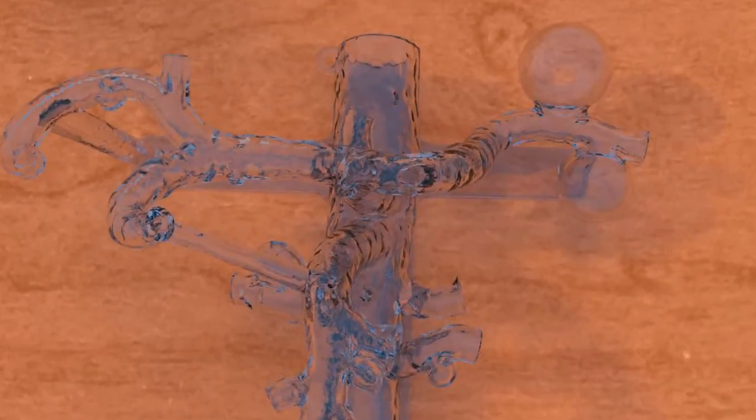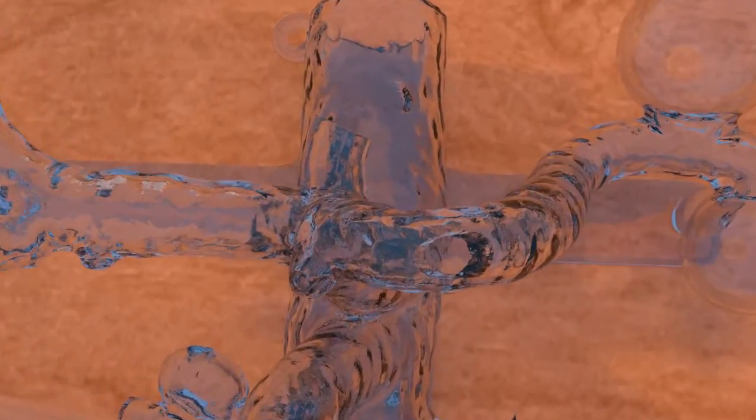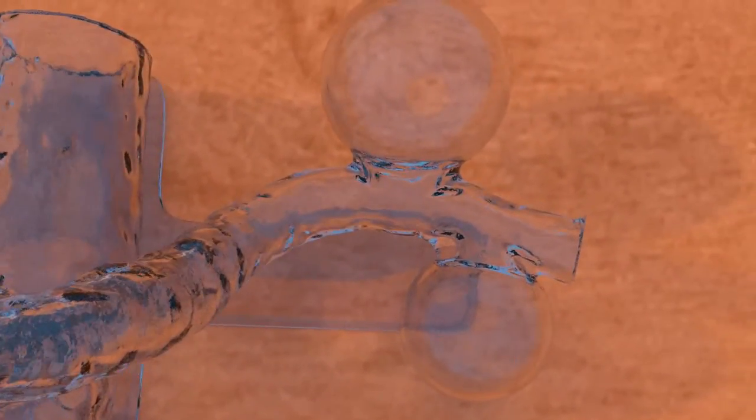The splenic artery portion of the model comes with two built-in aneurysms. The proximal aneurysm is 25mm with a wide 10mm neck, and the distal aneurysm is 20mm with a 7.5mm neck.